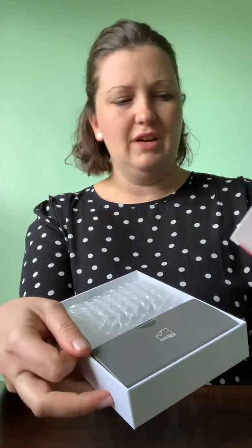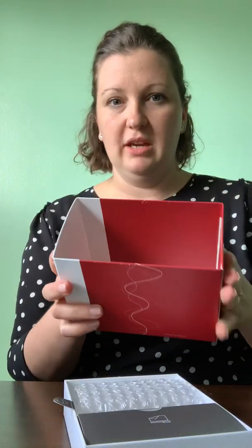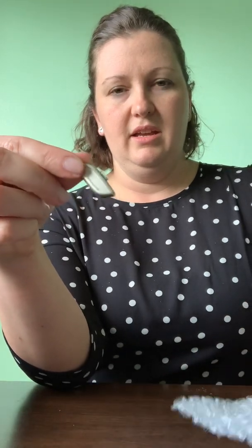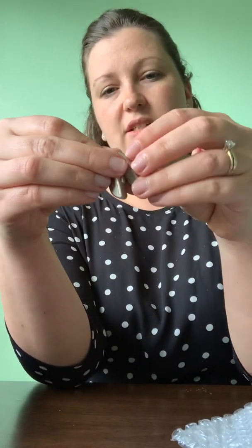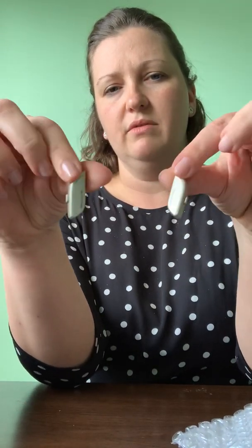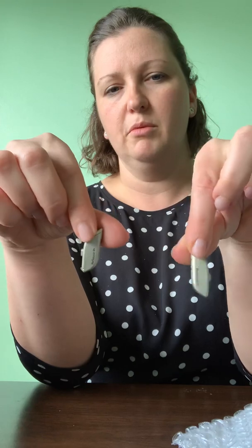I feel like this is a new drawer system, which is kind of nice, but it's all paper-based packaging — it's very recyclable, which is something we try and make sure we do at our office. And there's the little devices — they come bubble wrapped. This is the champagne color. It's a very subtle color, a really pretty sleek looking design — sort of a modern or postmodern look.